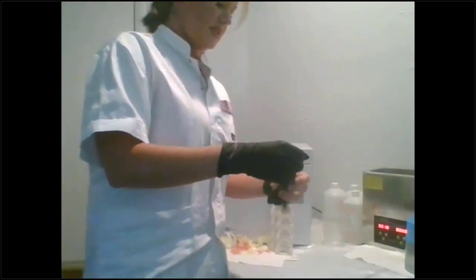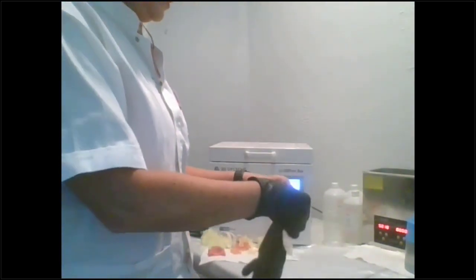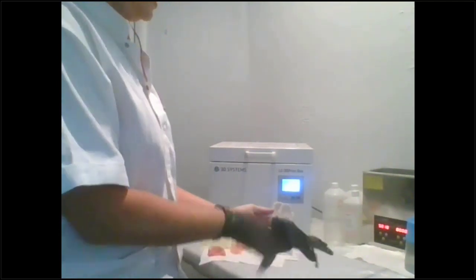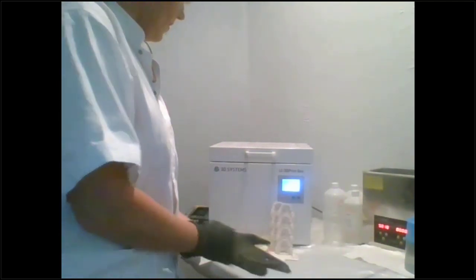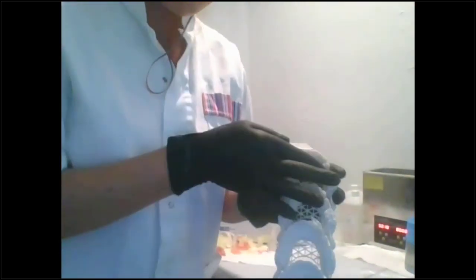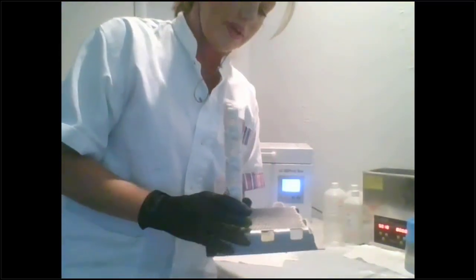So I printed this yesterday. I actually pulled off some of these supports already, and I do have the surgical guide build. It's still in the printer actually, but I can show you a close-up of these models here. So if you see, I already pulled off these lingual supports. That's the first thing that I do. If you look at the tray, I did another webinar yesterday, so that's why I did this build.